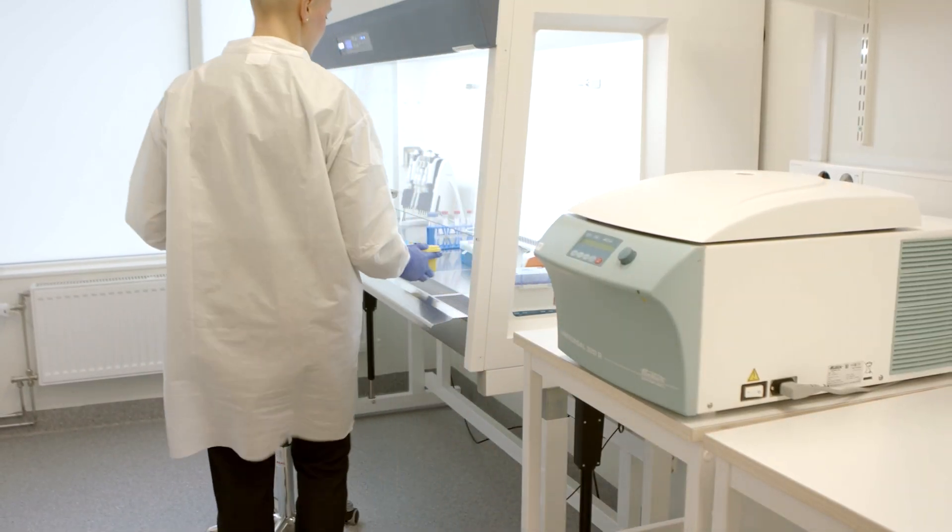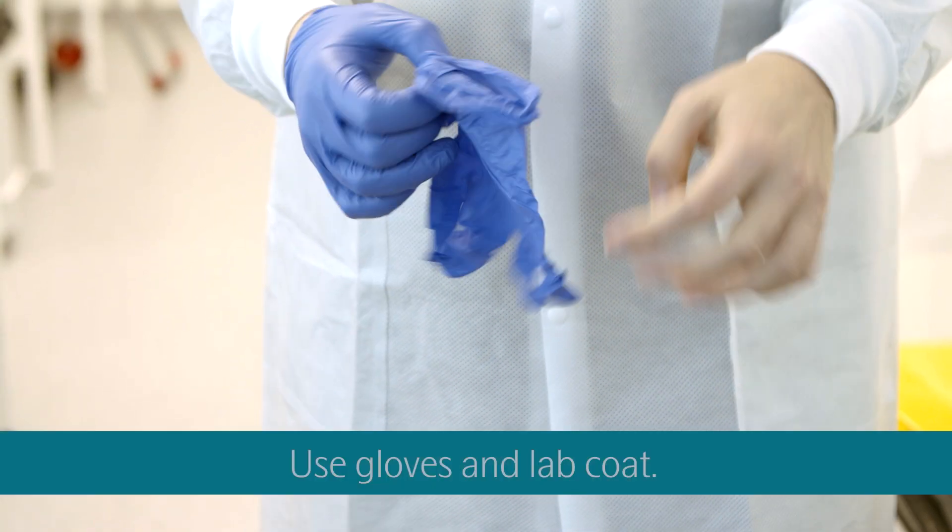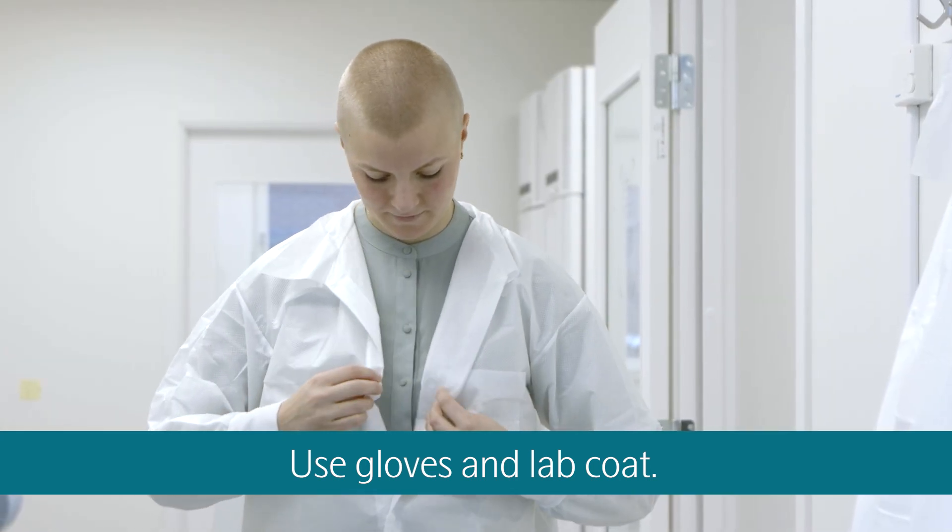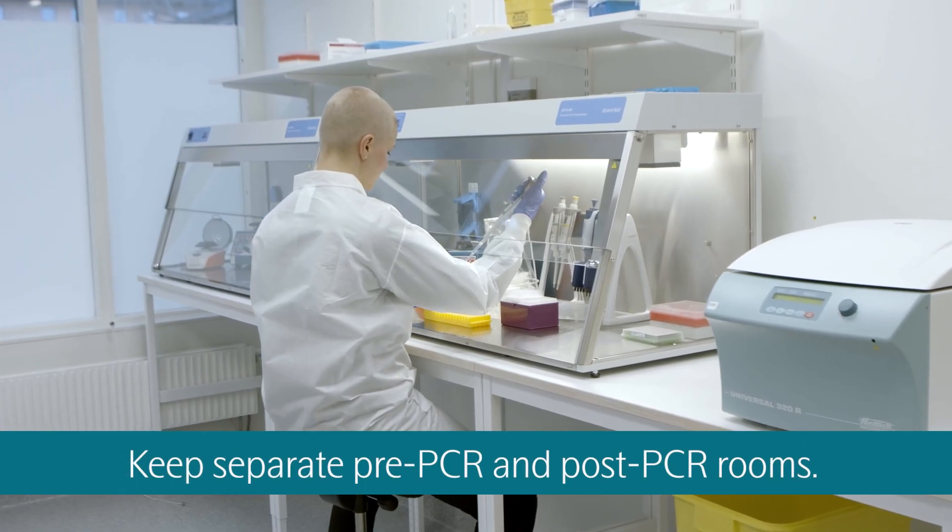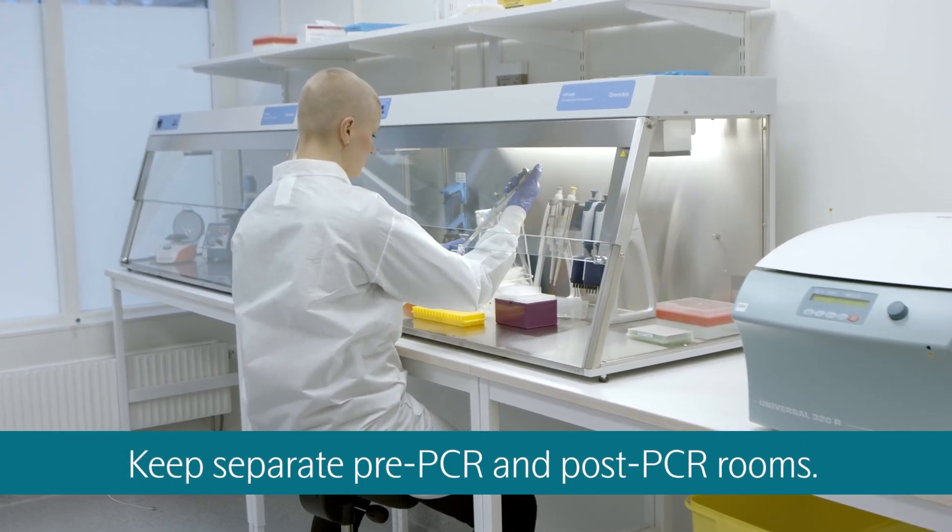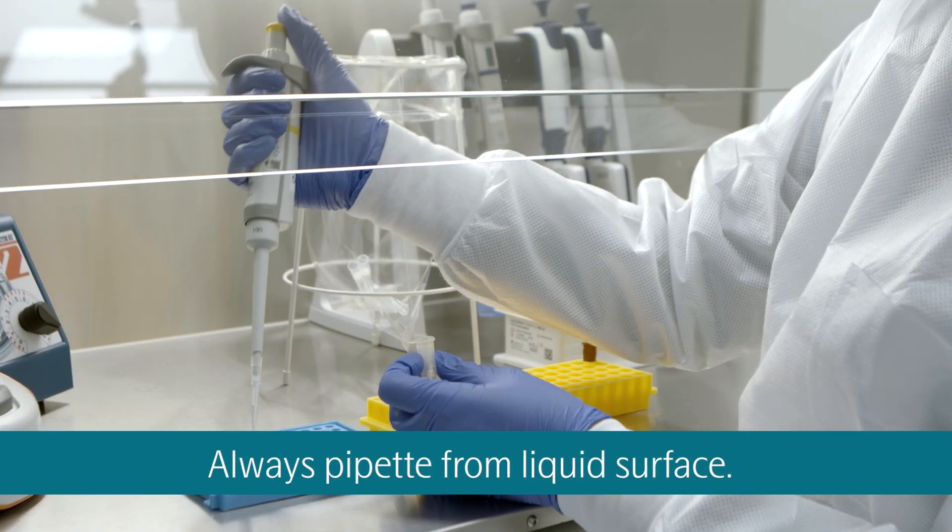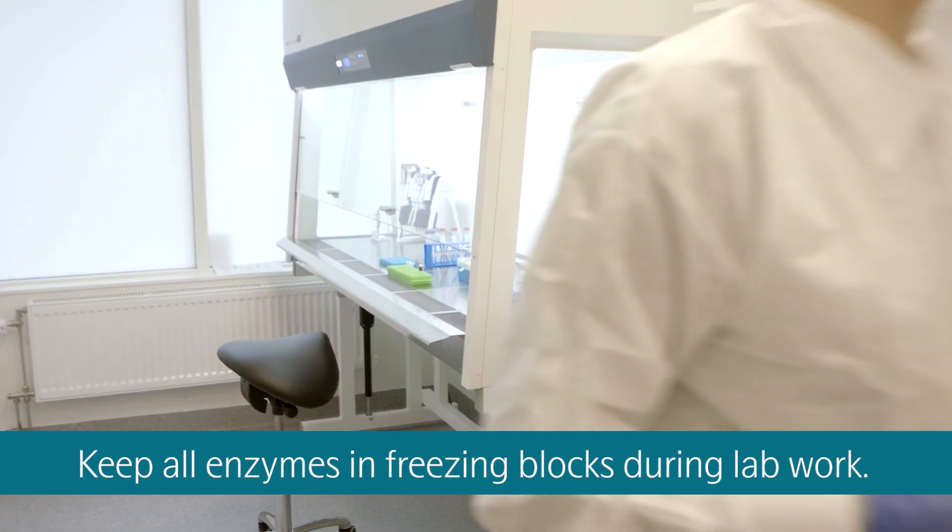There are a few considerations to keep in mind before running O-Link kits. Always wear gloves and a lab coat to prevent contamination of assays and samples. Carry out pre- and post-PCR procedures in separate rooms if possible. Always pipette from the liquid surface. Keep all enzymes in freezing blocks during lab work, and return them to the freezer after use.